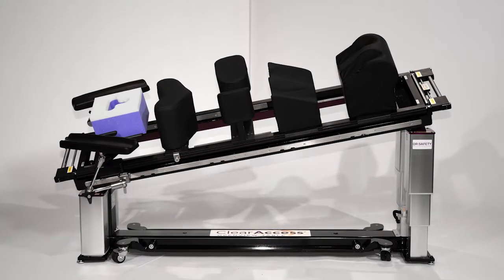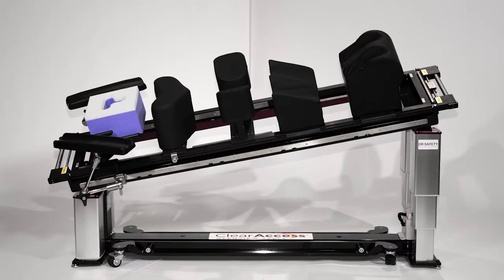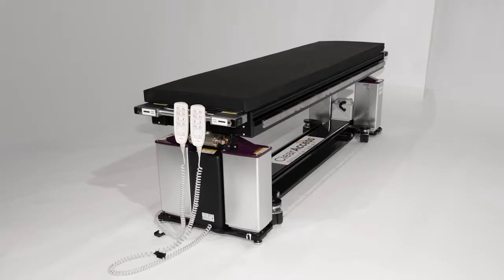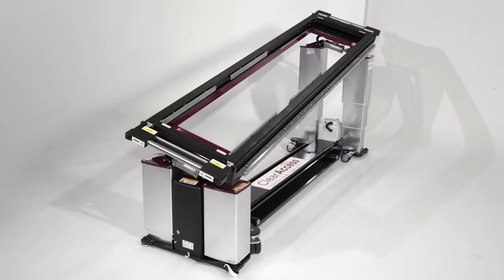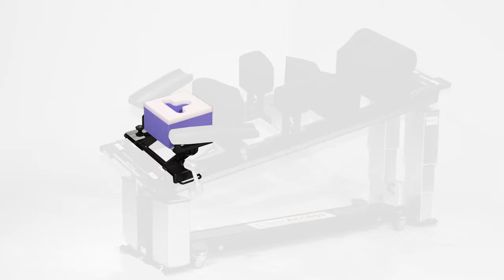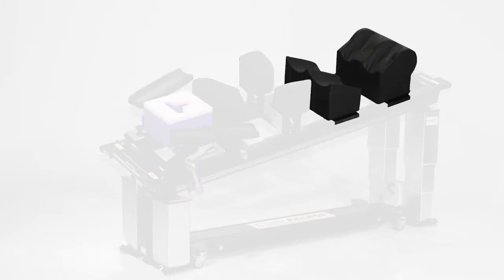This highly versatile specialized surgery table system begins with the ClearAccess table base and two tabletops, the supine platform or flat top, and the prone platform or open top. It includes the ClearAccess head support, multi-directional arm boards, the open frame spine frame, and leg management system.